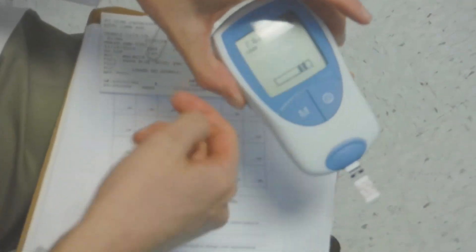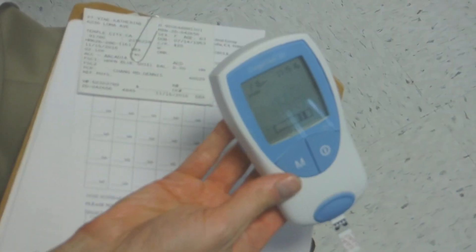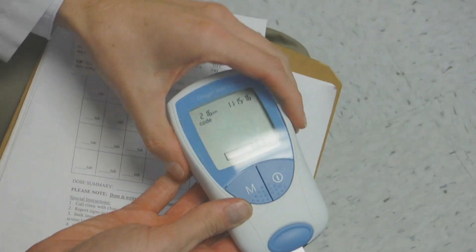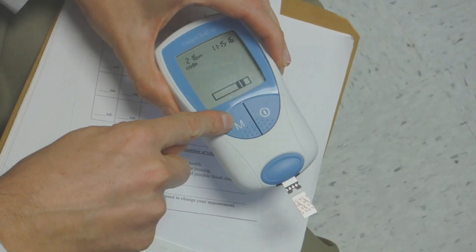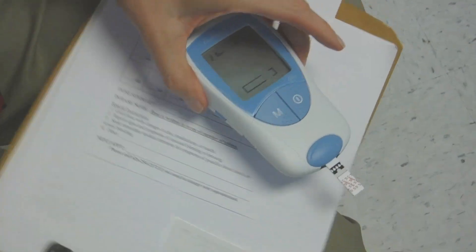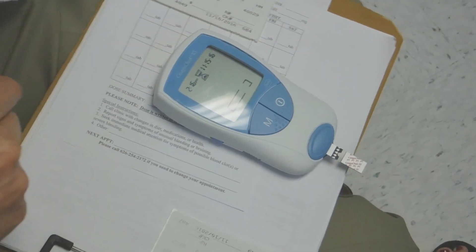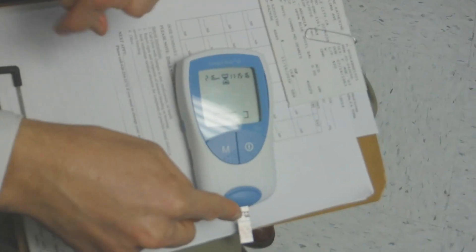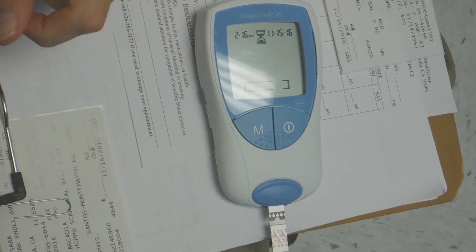Now it's 148. That's what you want. Oh, it tells you the number. So once you see that, you press the memory button, and it goes through a countdown period. If you put the blood sample while it's still counting down, you won't get a result. Okay, gotcha.